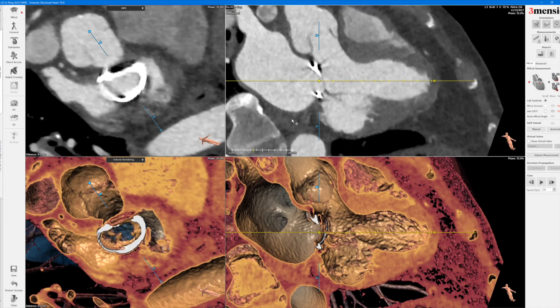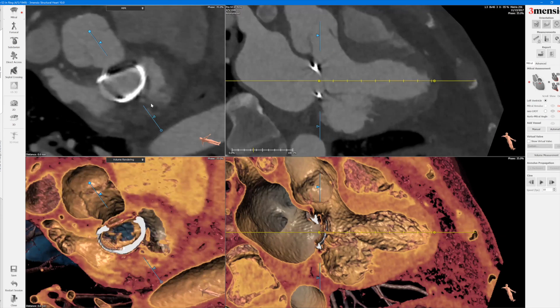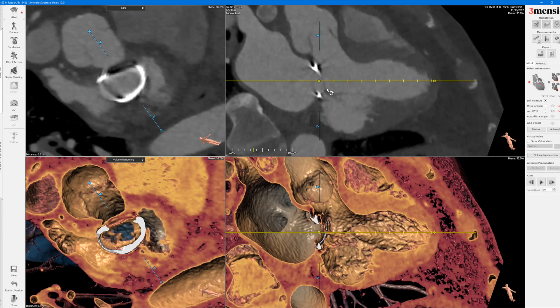First of all you need to drop down the blooming artifact. You can see that with this study there's quite a bit of motion artifact at the end-systolic phase. This study had better resolution at the end-diastolic phase, but you have to make sure on the CT protocol to have the acquisition on the systolic phase at the highest resolution to minimize motion artifact rather than in diastole. The gating and protocol is very important.